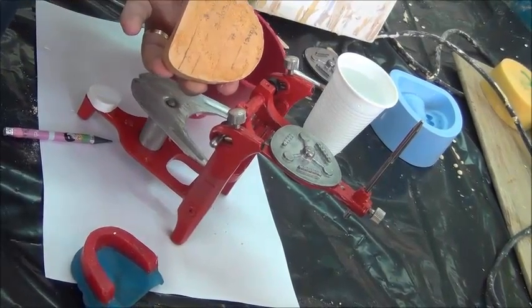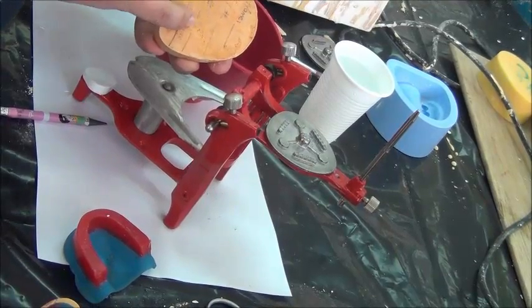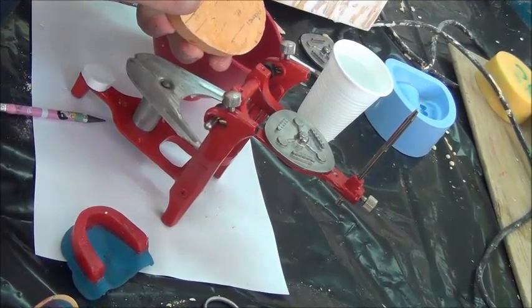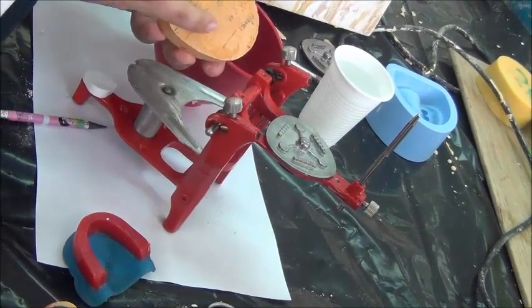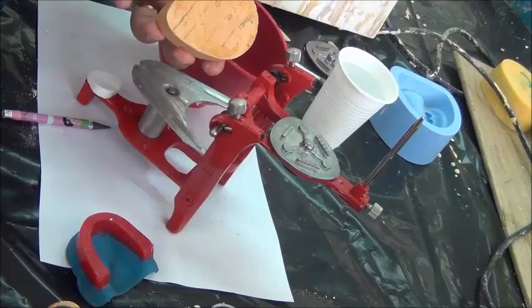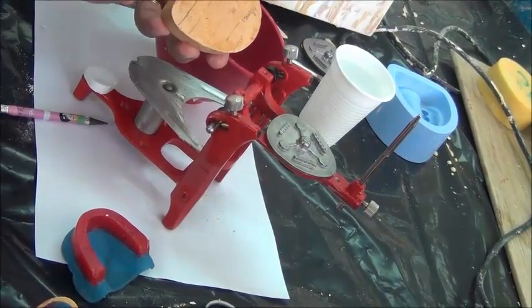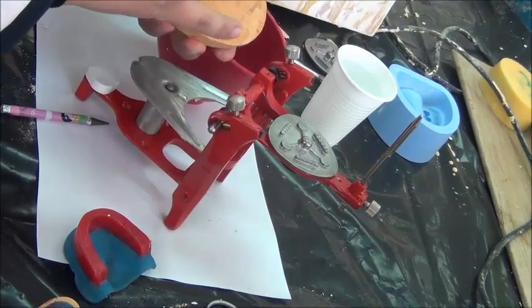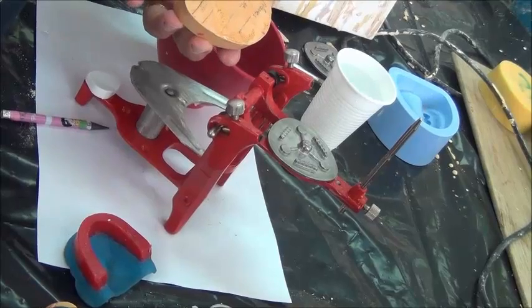This soft crystal surface, partly dissolved, will create good nuclei of crystallization for the new plaster, and it will bind better to the surface. If you don't soak it, the plaster can easily break off the cast in later steps. Also, soaking it has softened the cast a bit, so we are now ready to do notches.